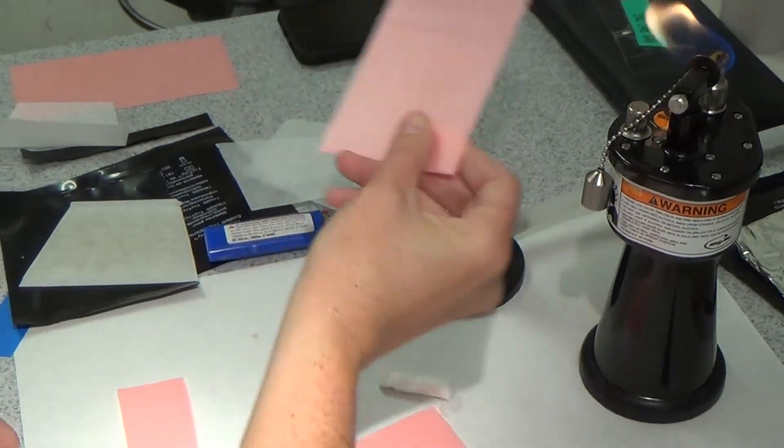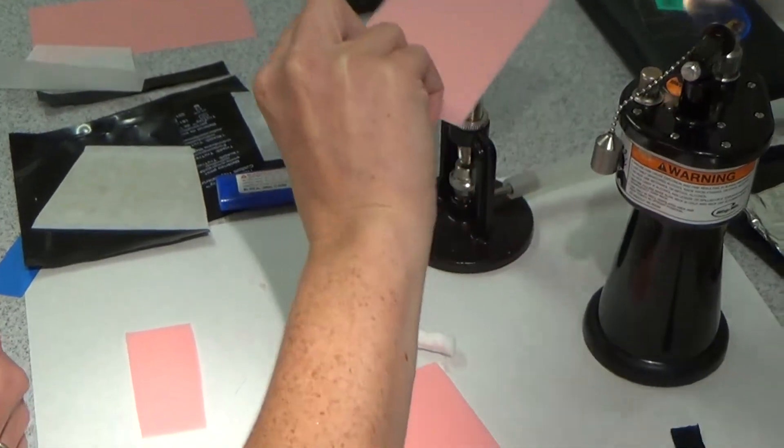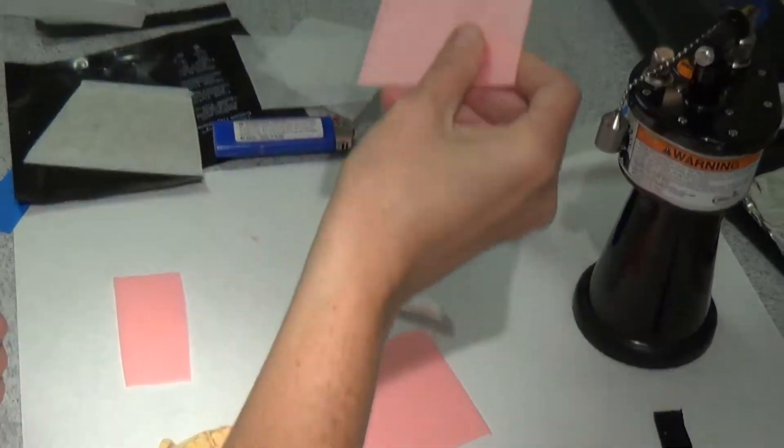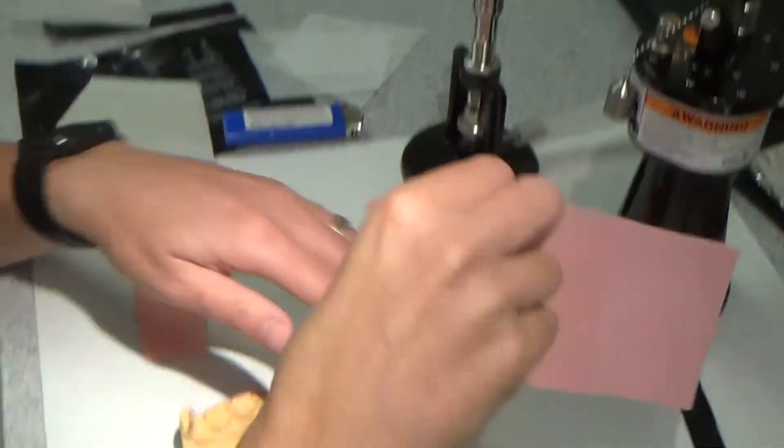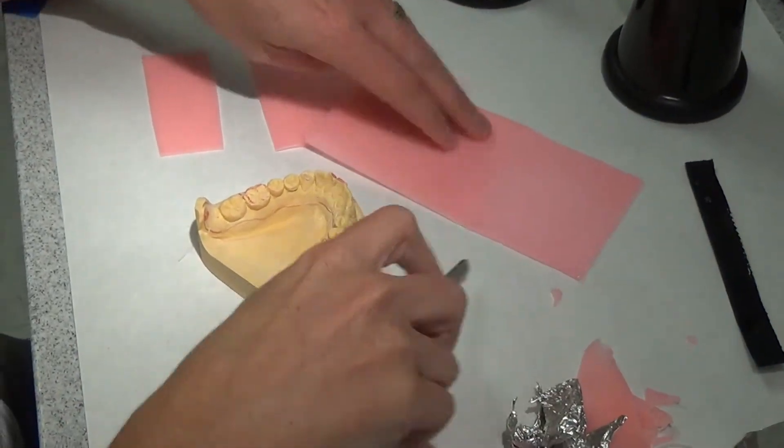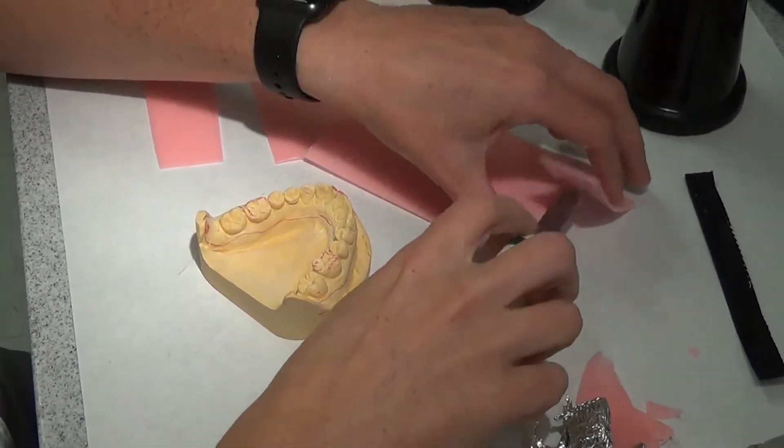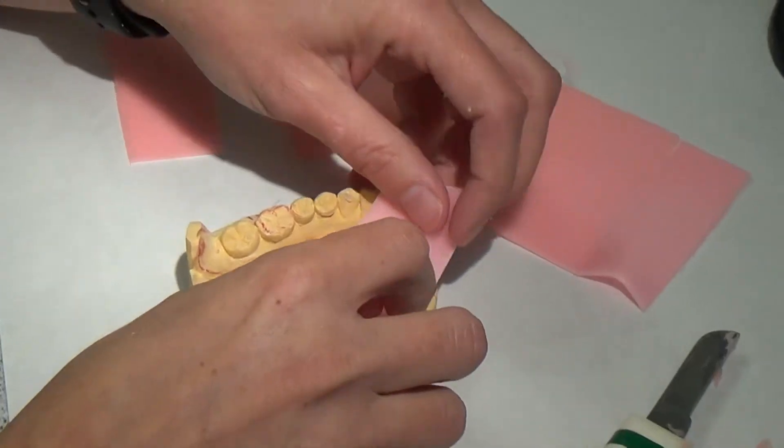Chairside here, if you need help with block out, just remember less is more when it comes to block out, as long as it is adequate. And so again, I'm going to cut my two squares.